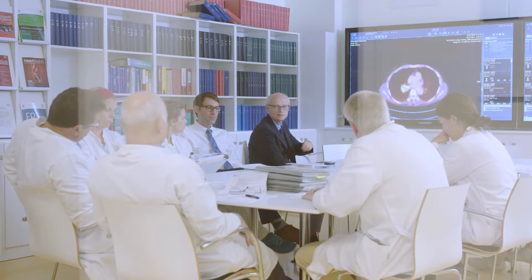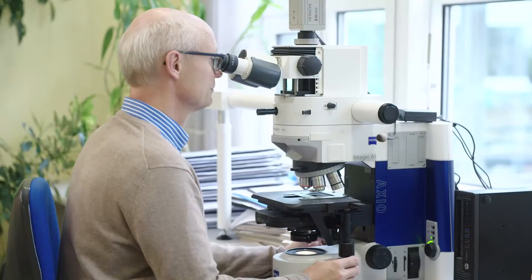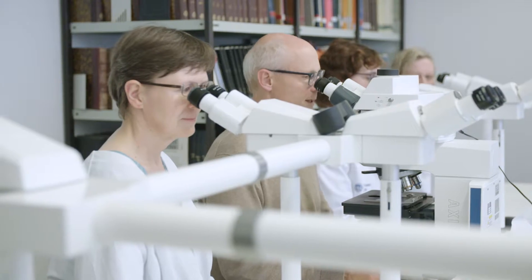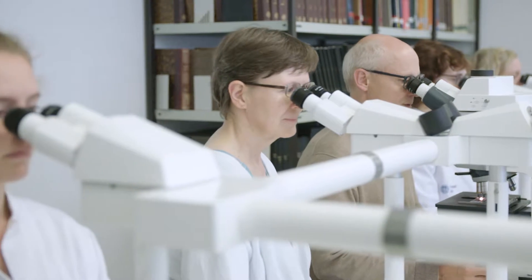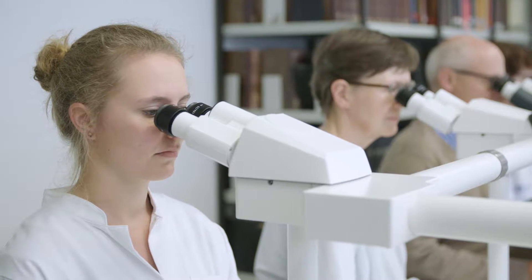The Institute for Pathology of the University Hospital Cologne is Germany's biggest academic pathology center. We pathologists at the University Hospital Cologne diagnose diseases by means of tissue specimens. These are partially small biopsies, which are obtained before the surgical procedures. The issues are therefore which disease is present. Is it actually a cancer disease? And if so, which kind of cancer?